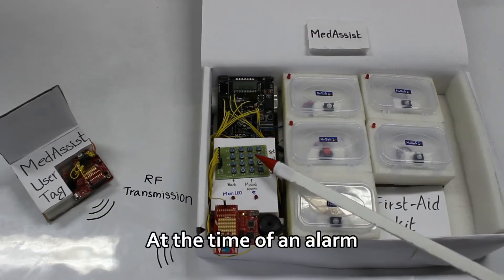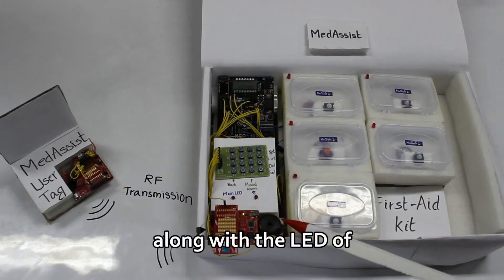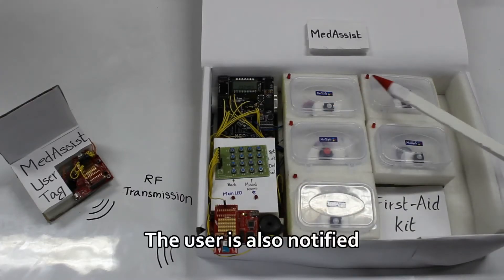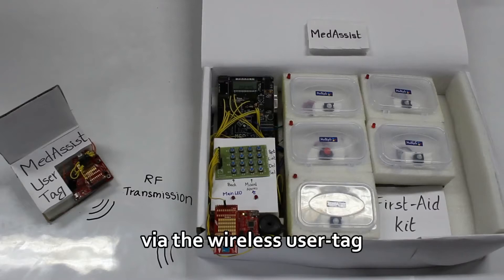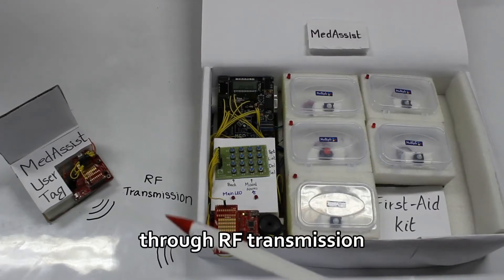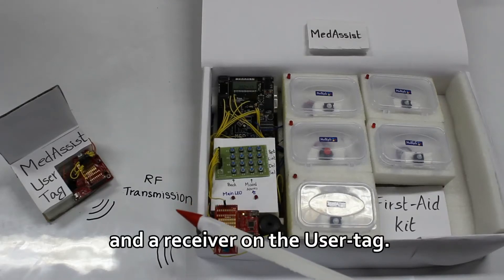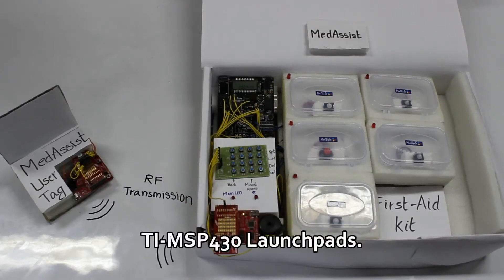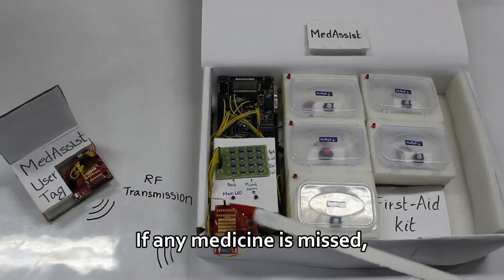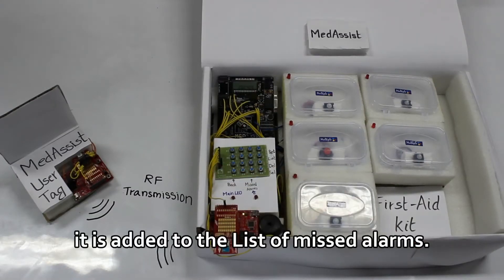At the time of an alarm, the main LED and the buzzer are turned on along with the LED of the corresponding compartment. The user is also notified via the wireless user tag through RF transmission between a transmitter on the box and a receiver on the user tag. These two are realized using TI MSP430 launch pads. If any medicine is missed, it is added to the list of missed alarms.